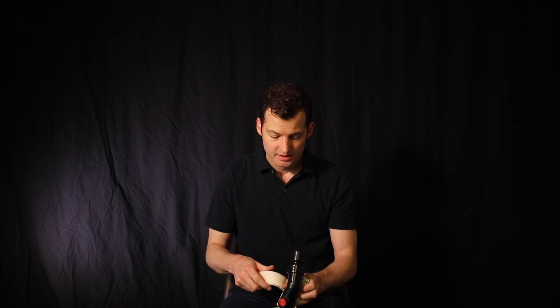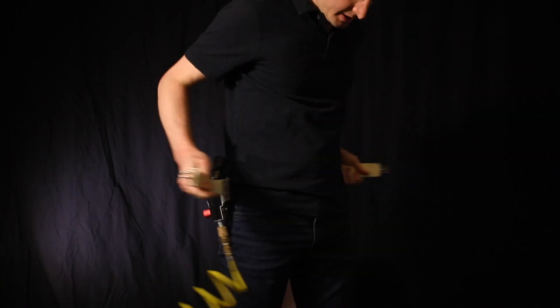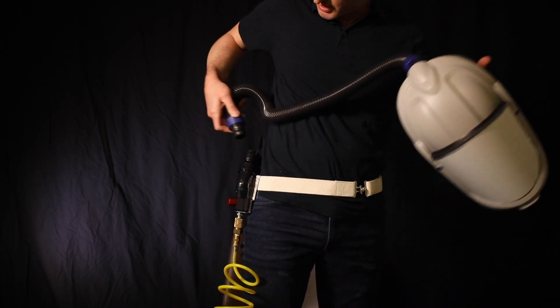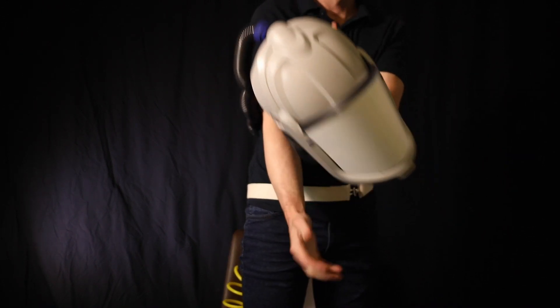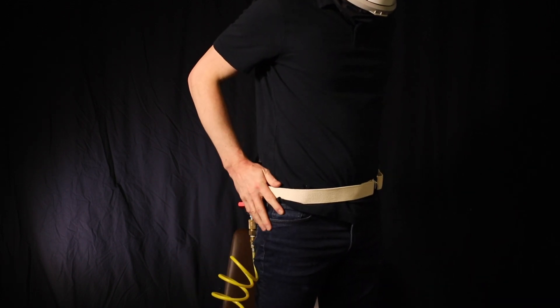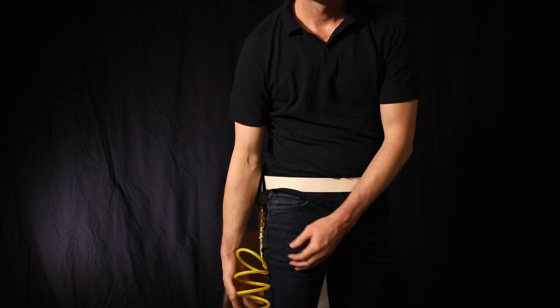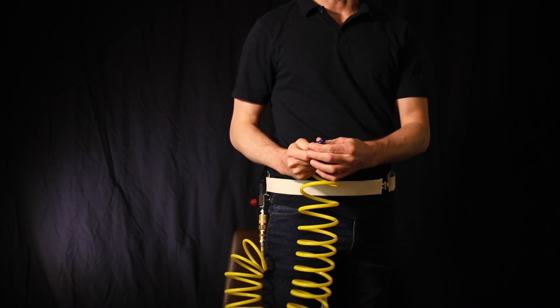The V300 also has a belt — this isn't the best belt to sterilize, but it snaps in here. You want to hook this on your belt or waist. This Versaflow tube just pops in and turns. You can move this to the back and then put on your helmet. Now we have a powered positive pressure air supply from our medical airline. This just plugs into the medical airline — again, you may need a DISS adapter in order to do this. That's the 3M version.